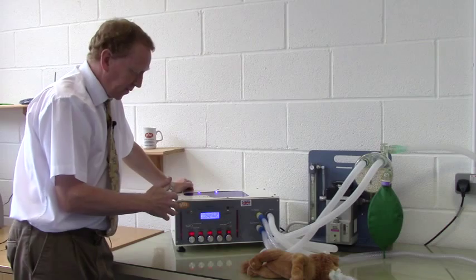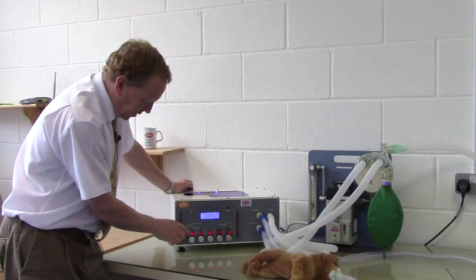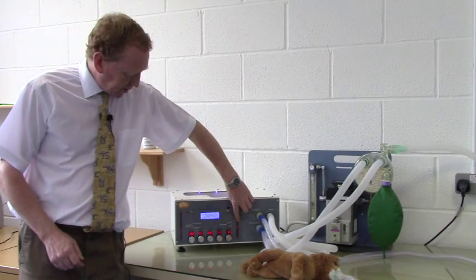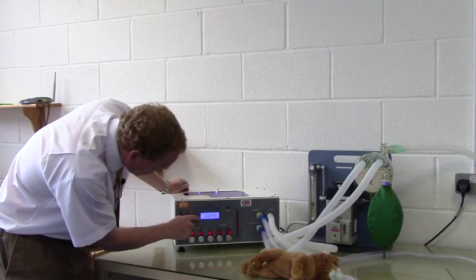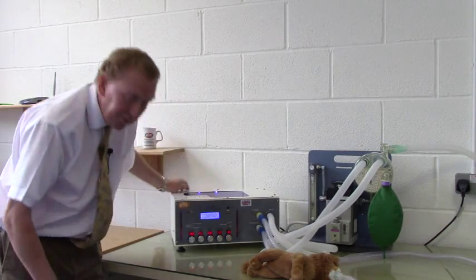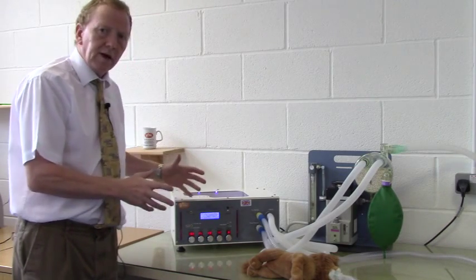So this is our target airway pressure, and if we have made our calculations correct, then we should find that the volume delivered will be about 150 mls, as we had with the previous volume cycling. Assist mode is off. We hit run. We will see that Leo's chest is inflating just as before. The airway pressure is getting up to just under 15 as seen by the bar graph gauges. And if we look on the screen, we can confirm that the airway pressure reached 12, which is what we have set. In addition, Merlin knows very accurately how much volume has been delivered and can measure and display it on the screen. Here we see that the tidal volume is 152 mls — so we have achieved exactly the same ventilation performance with pressure cycling as we did with volume cycling.